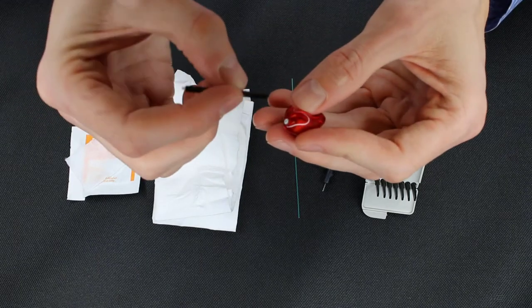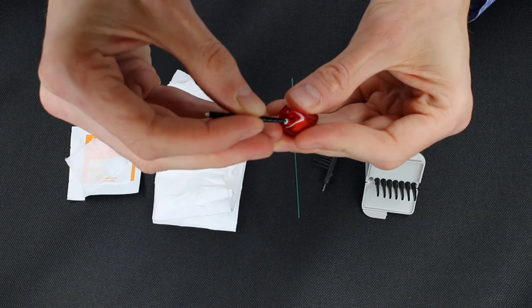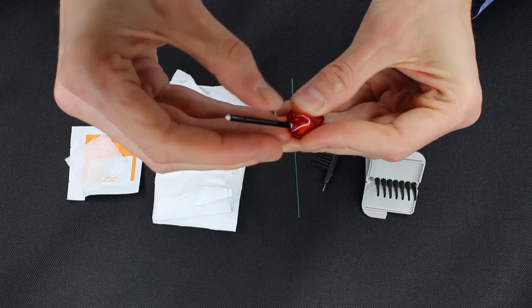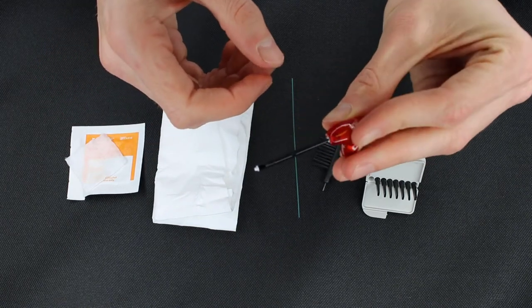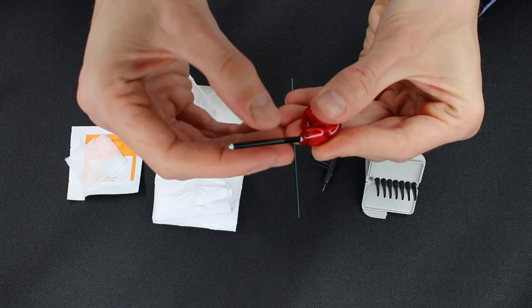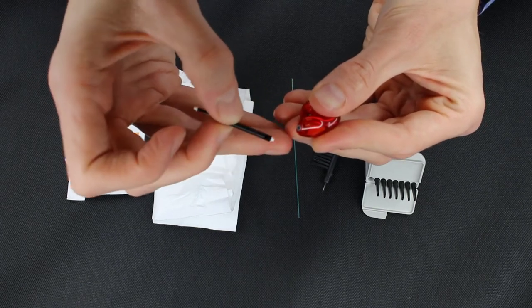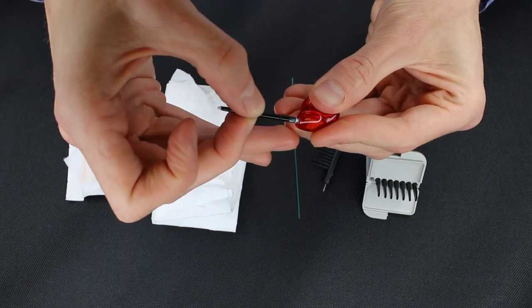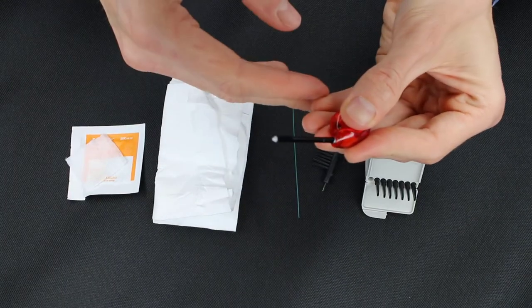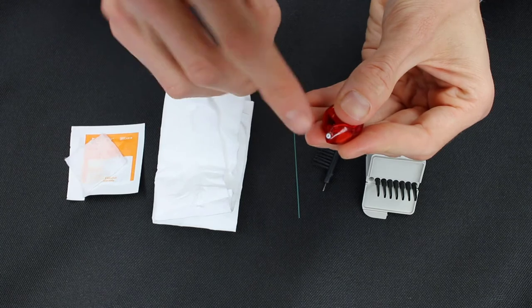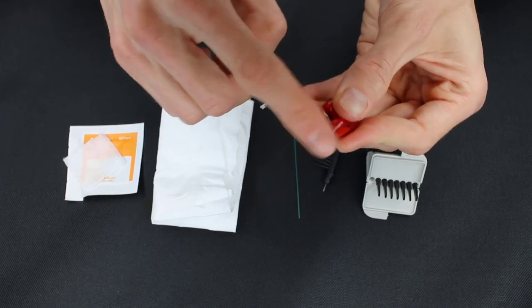So how this works is we're going to take and punch it in the center of that wax trap, just like that. It should hold on to it nicely. And then we will pop it out. We will flip over the other direction and we'll put in the new one, push it in, and pull it out. And you can see that the new one is now in there and staying put.